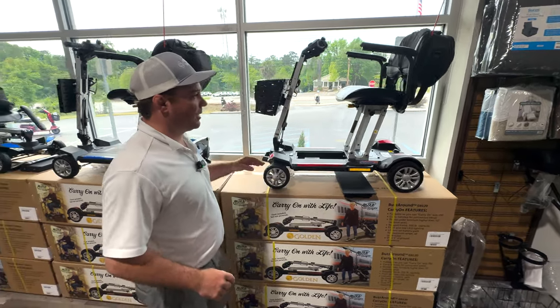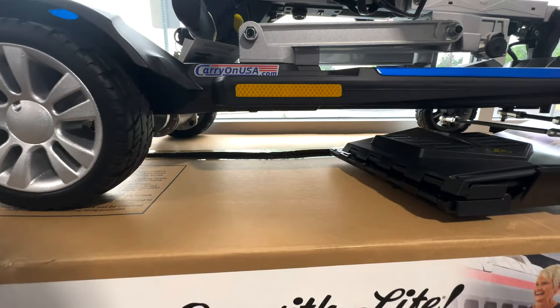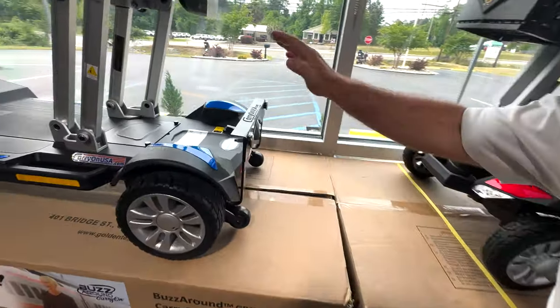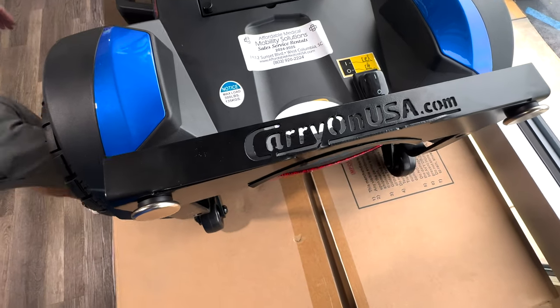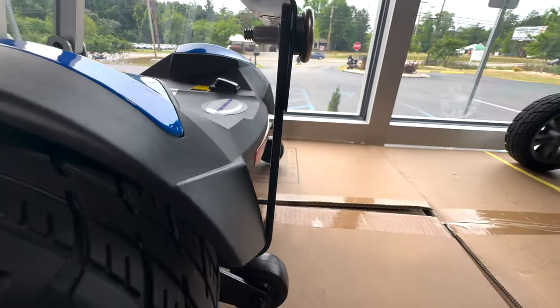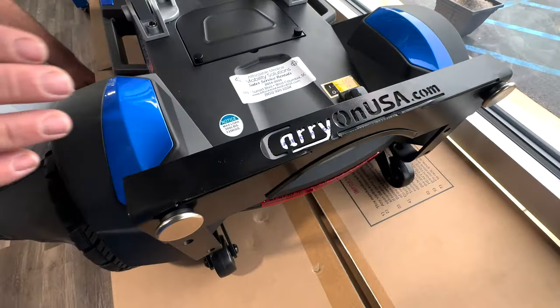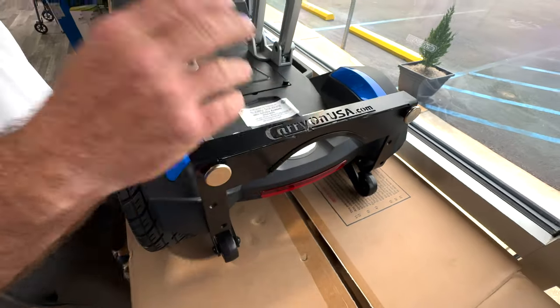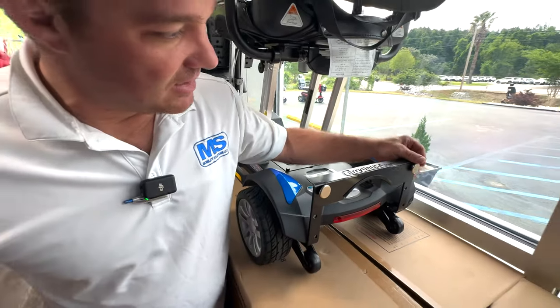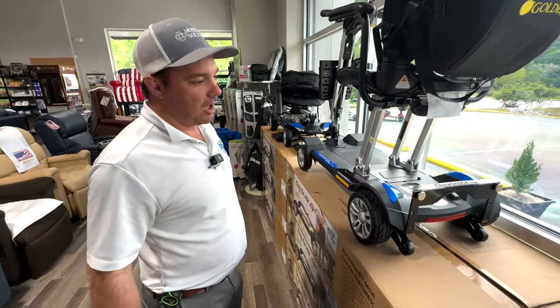This folds down. They are launching a built-on handle kickstand. We were the first people to ever bring you the kickstand. We knew there was a little bit of an issue with this scooter with standing upright, so we developed what we call our kickstand. We're going to see how it compares to Golden's new kickstand, but we were the first ones to bring this to you and helped get this kickstand feature on this scooter. We're not sitting around watching other things happen — we actually put stuff together if it's not there and work with the manufacturer to help develop that type of solution. We thought this was much needed: an extra lifting handle at the back that allows you to grab it and stand it straight up. This isn't version one — this has been tried and tested. We've had them out for about a year now. We got it pretty smooth and nice.